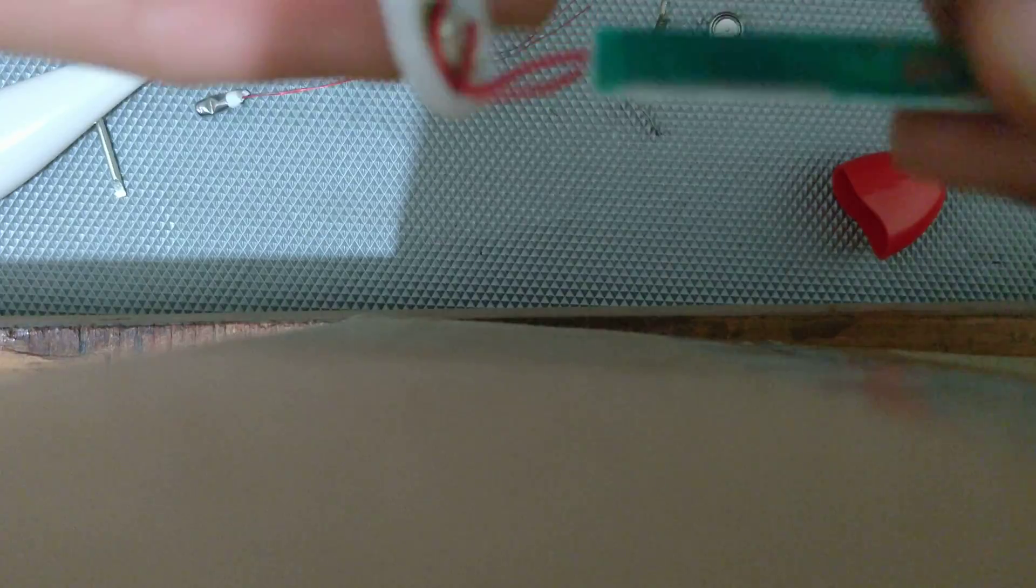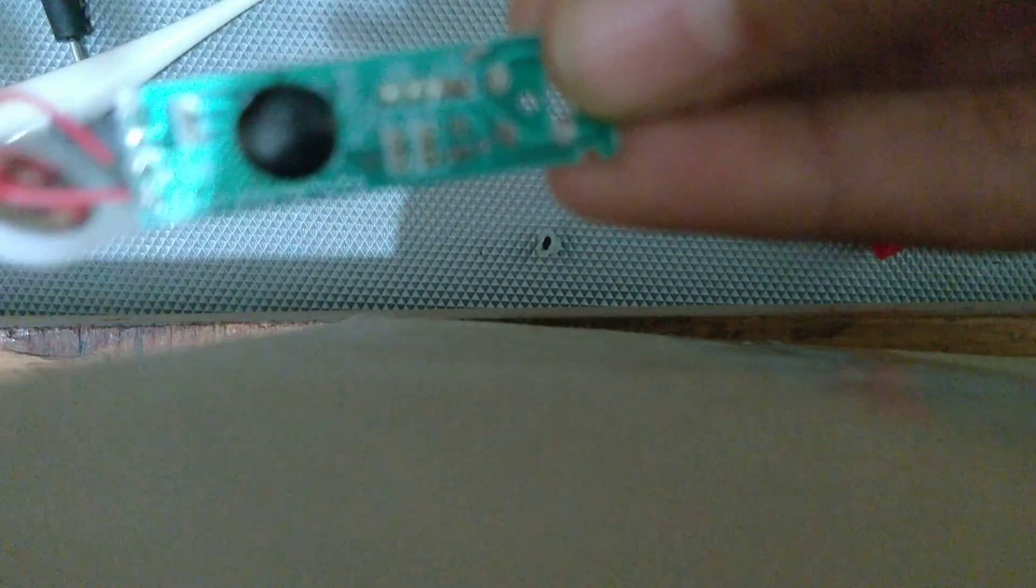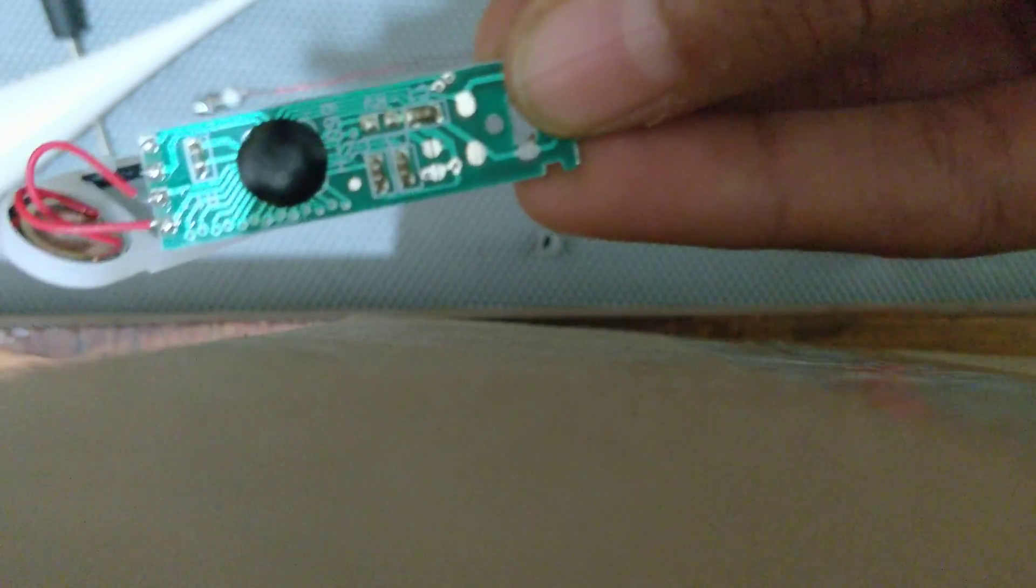If you carefully observe the circuit, what you can get is I think over here they have put the IC or the microcontroller which is controlling everything, and here is the button's mesh.